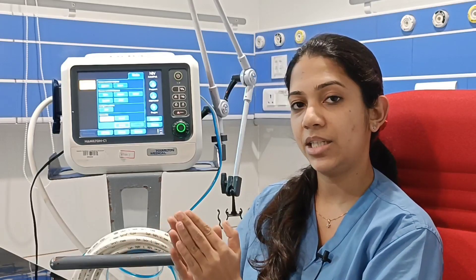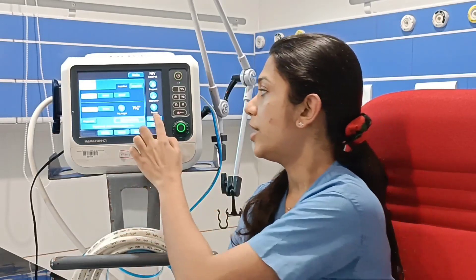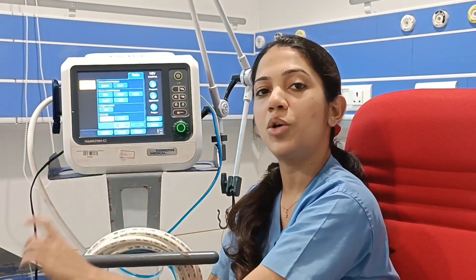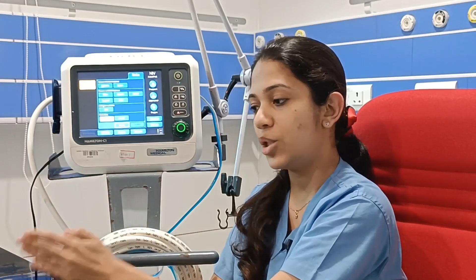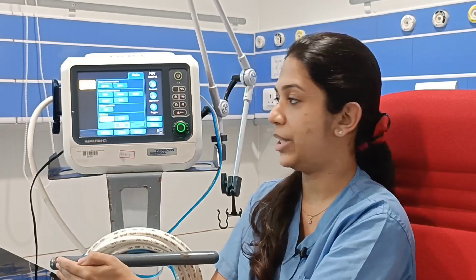In volume control mode, we set a tidal volume required for the patient, and the ventilator provides an inspiratory pressure so that the patient and the ventilator try to achieve that volume. Whereas in pressure control mode, we set an inspiratory pressure, and depending on the pressure we set, the ventilator will give the tidal volume for the patient.